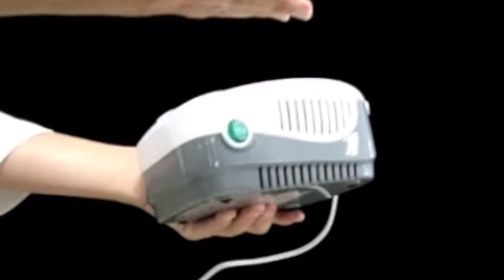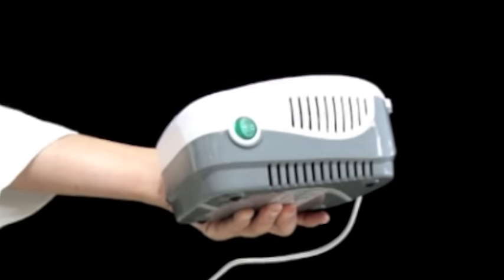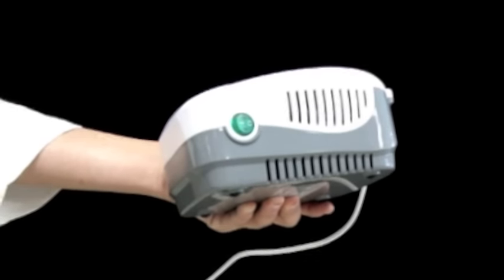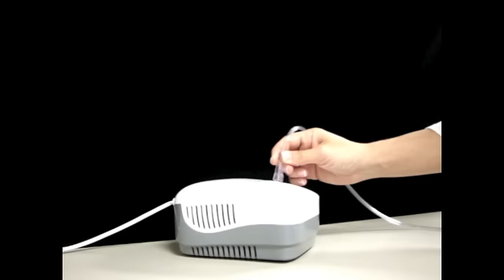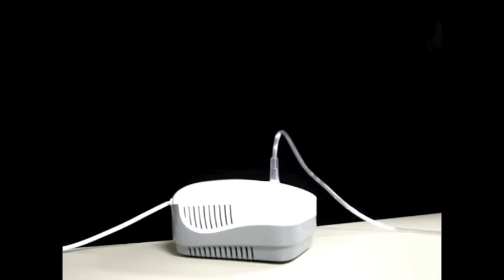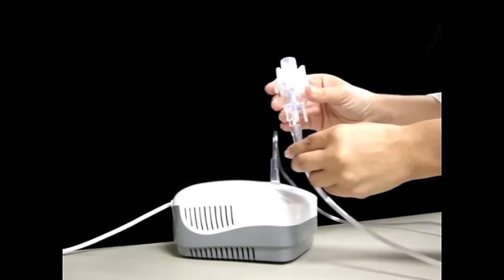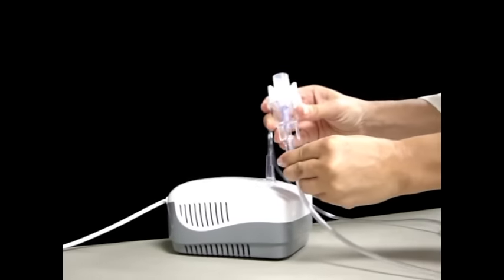Make sure the vents on either side of the unit are not blocked to allow necessary air flow into the compressor. Connect one end of the tubing to your compressor and the other end of the tubing to the bottom of the medication cup.